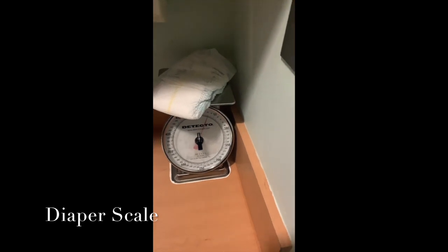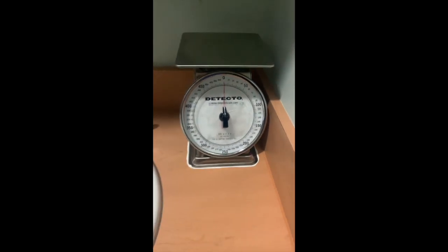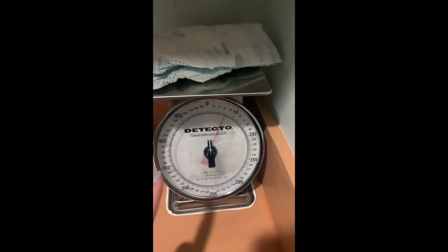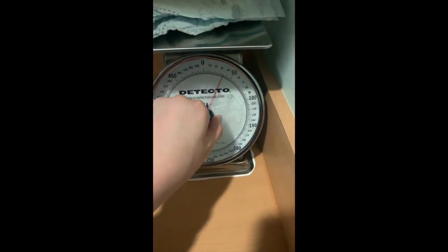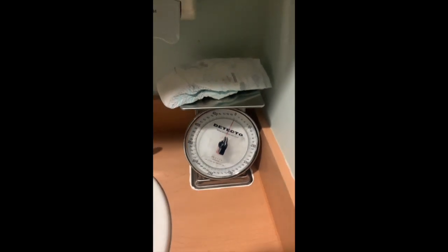All right, so one of the things that we use in the pediatric world are diaper scales. So as you can see, it's just a normal scale, and what we do first is place the diaper on the scale to make sure we zero it. So for example, when we're measuring the output of a patient, we want to make sure that we're not counting the weight of the diaper. So we're going to take this knob and move the 0 to here. That way our scale is zeroed at the weight of the diaper, so that when the patient has output, we can then place the diaper that has been used on the scale and it won't count the weight of the diaper. So we use this to help make sure that we're measuring the output of our patients very exactly.